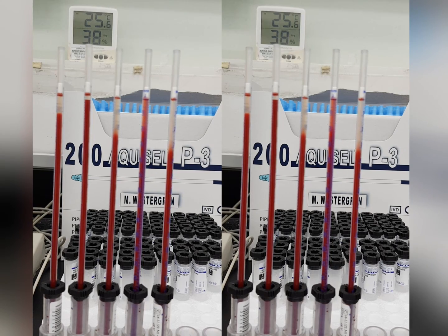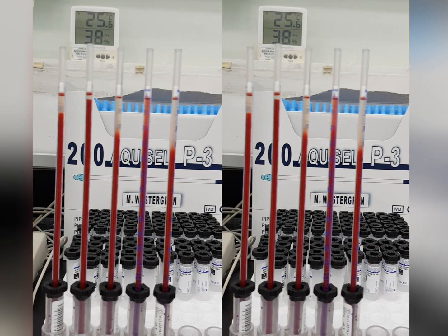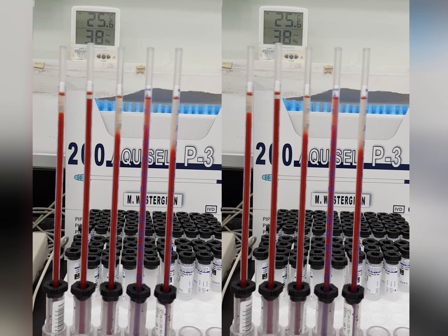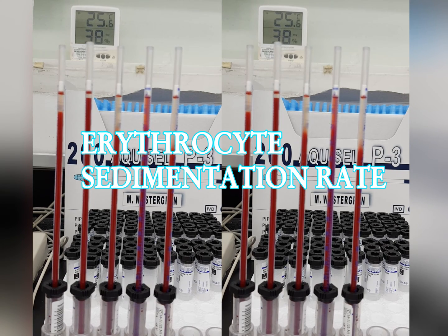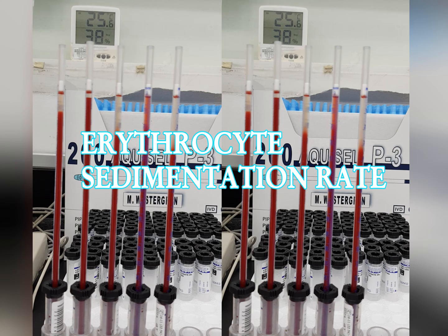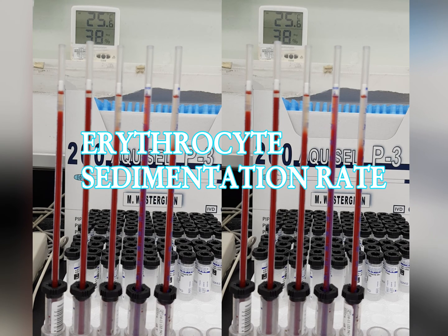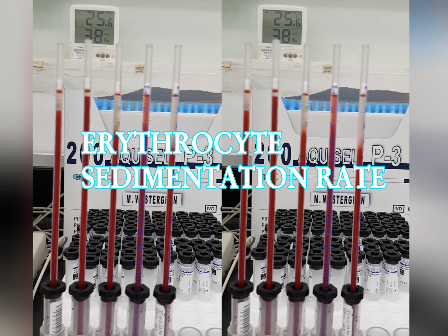read the scale in millimeters at the point where the red cell column meets the plasma, which is called the erythrocyte sedimentation rate. Record your results in millimeters per hour in your logbook.